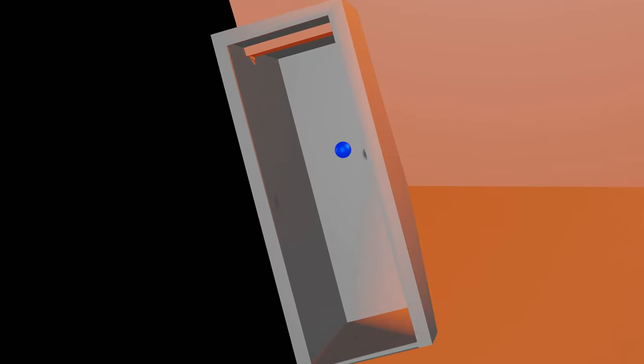Consider this blue dot, a point inside x-ray target. X-rays produced from this point need to first get out of target itself. Some of the x-rays will suffer absorption in the target itself before reaching target surface.